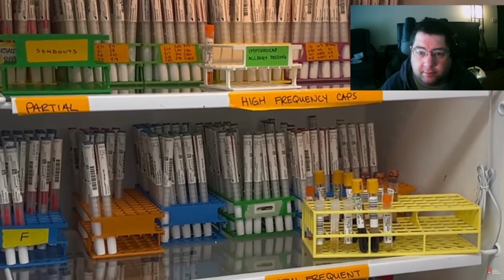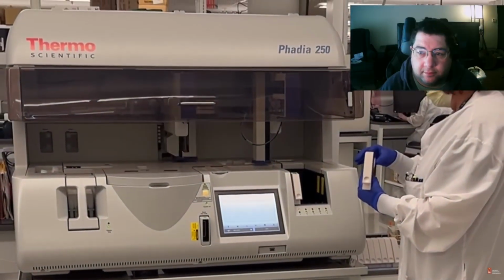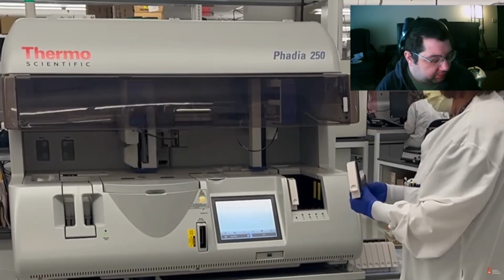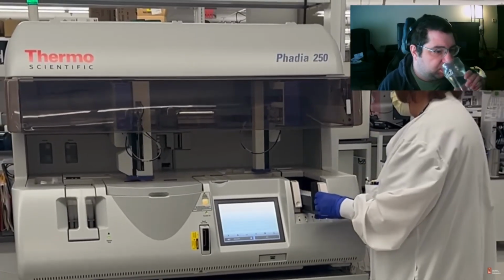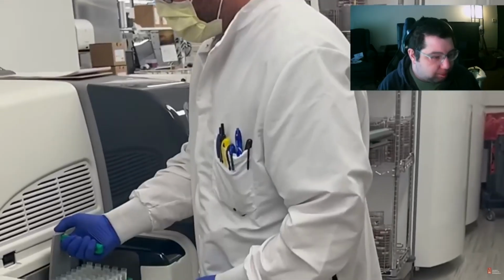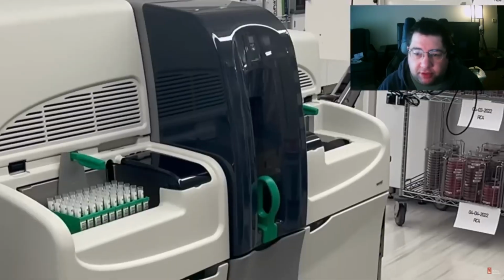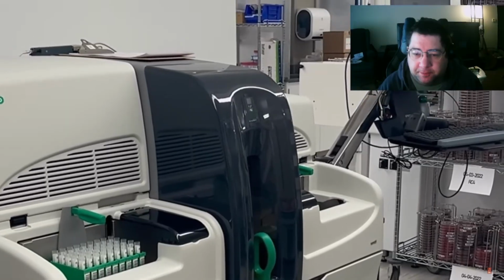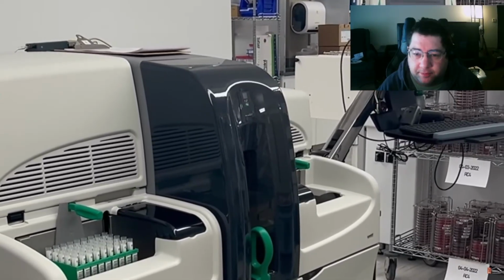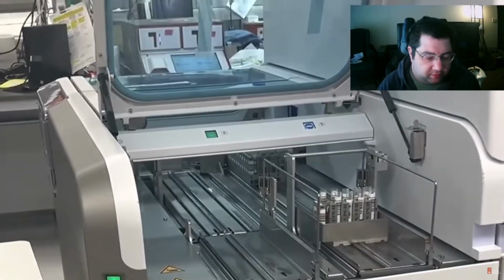One of the high-volume tests performed in our laboratory is allergy testing, which is done using the Phadia ImmunoCAP assay. Oh, that's interesting. This assay detects and quantifies IgE antibody levels in patient serum to specific allergens, including grass, nuts, dust, insects, and venom. The Bioplex instrument is used for diagnosis of autoimmune diseases. Ooh, the Bioplex. This multiplex immunoassay processes serum samples to detect biomarkers for diseases such as lupus, rheumatoid arthritis, and celiac disease.